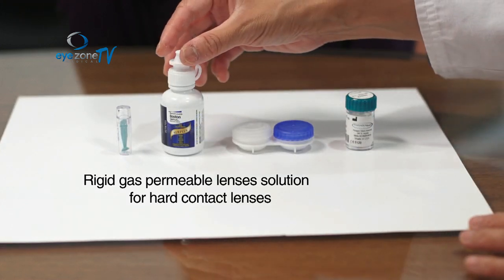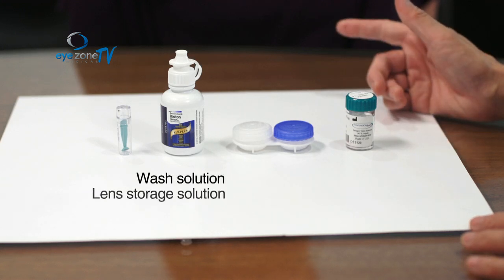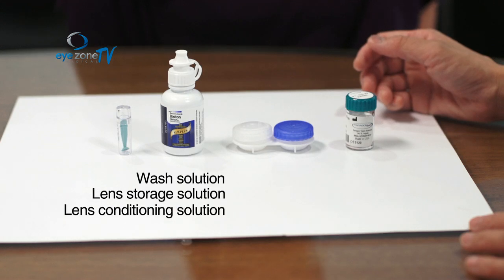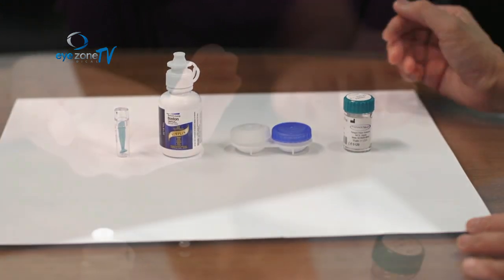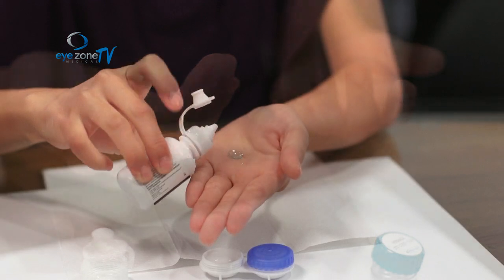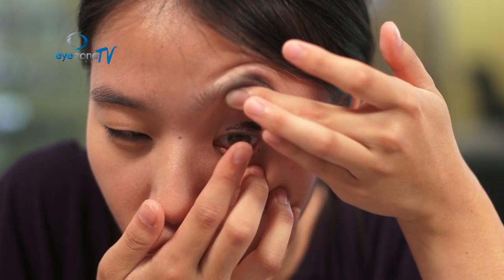I like this particular solution because it's a multi-action solution — it washes, stores, and conditions your lens all with the same bottle, so it's much easier and harder to mix up the steps. There are other systems with multiple bottles where you have to get each step correct, but I prefer the multi-action option. When you're getting solution for your CRT lens, look for a multi-action gas permeable lens solution.